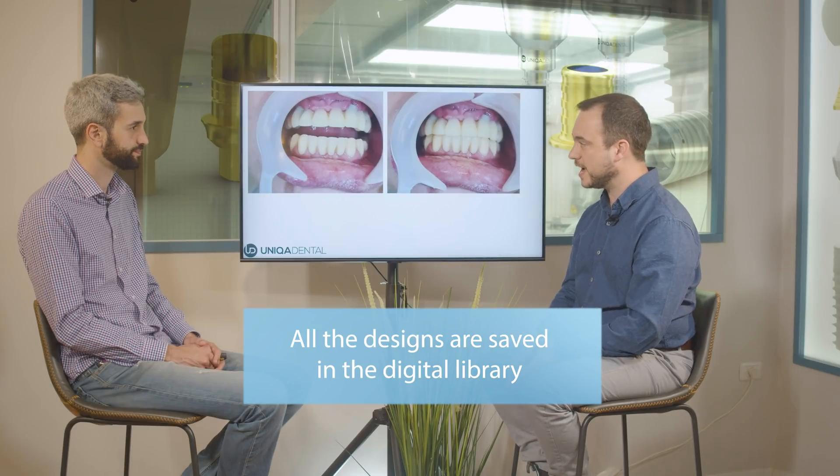We got the central line in exactly the place we wanted, and the tooth anatomy is good enough. If the patient has any concerns, we can change the design: add or remove material, move the teeth buccally, or make the teeth a little bit smaller — depending on the patient's wishes and what we see in the mouth, because in the computer you don't always see the same thing. We played with the anatomy a little bit and changed it each time. When you mill or print the provisional bridge, you already have this design in the computer, so the final version with good anatomy can be milled from zirconia and sent to manufacturing as the same design as the provisional bridge.